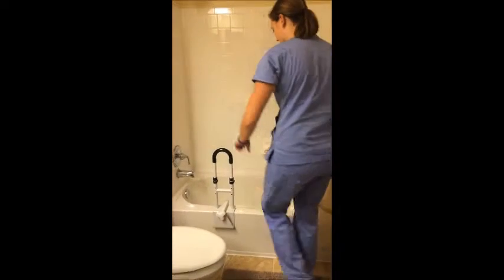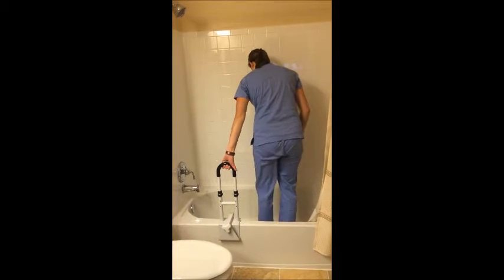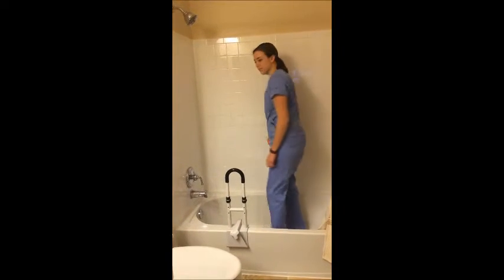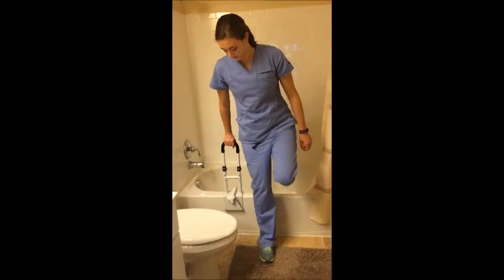To use, first place a hand on the rail. Slowly step over the tub ledge while holding onto the rail. Be sure to hold onto the rail when getting out of the shower as well.